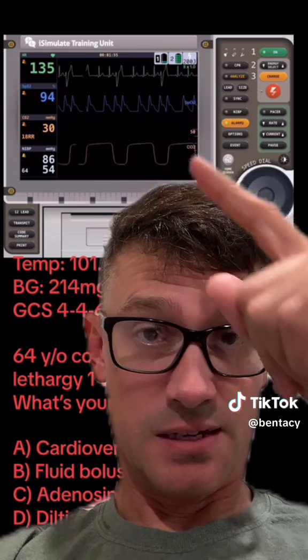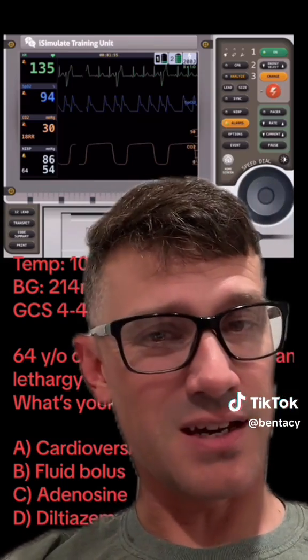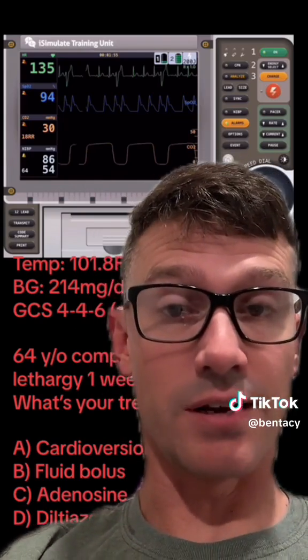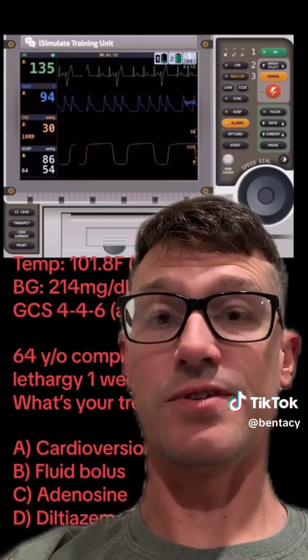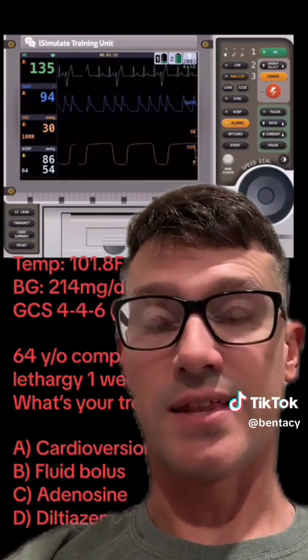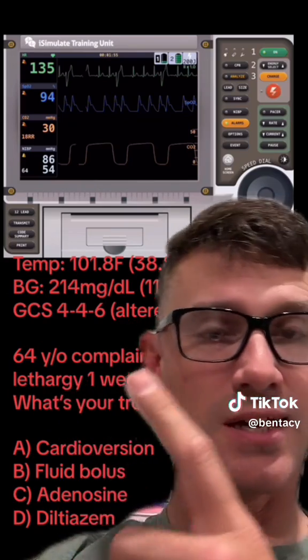PVCs are thrown as flags that something is causing the heart to be irritated. SpO2 94% — nothing abnormal there. EtCO2 of 30 — they must be hyperventilating, right? No, their respiratory rate is only 18, so a VQ mismatch would cause that hypocapnia. Blood pressure 86 over 54 — yes, if they are hypotensive they are hypoperfusing, and that hypoperfusion can also cause that hypocapnia. They have a fever, and they are hyperglycemic and altered.